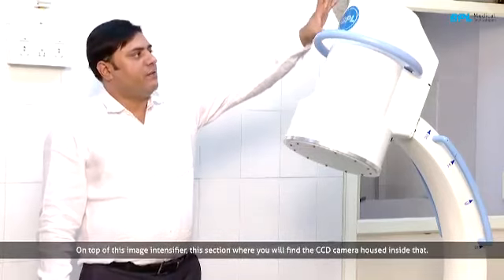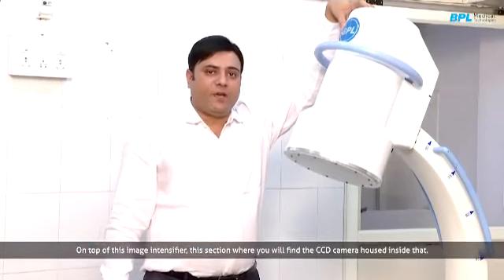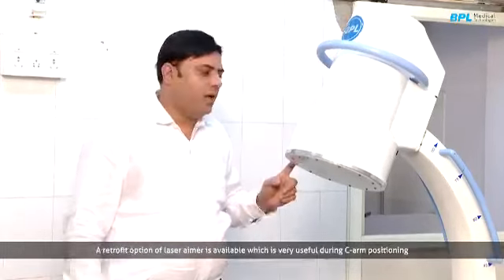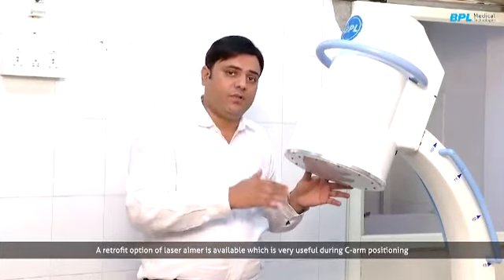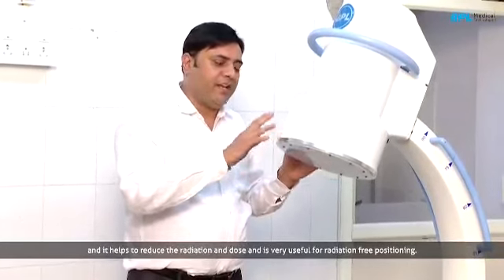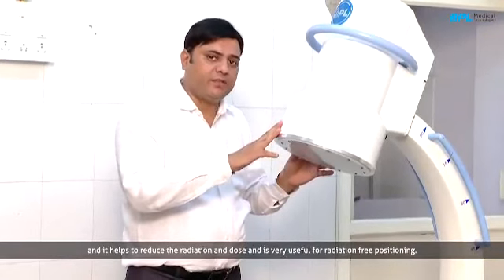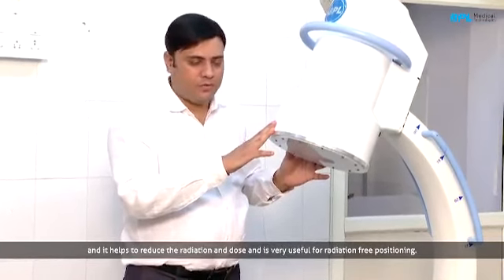On top of this image intensifier you can see this section, and here you will see the CCD camera housed inside that. A retrofit option of laser aimer is available, which is very useful while doing C-arm positioning, and it helps to reduce the radiation, to reduce the dose, and this is very useful for radiation free positioning.